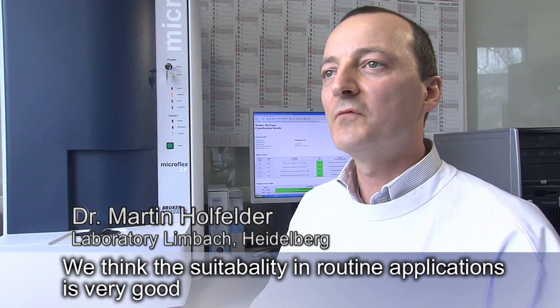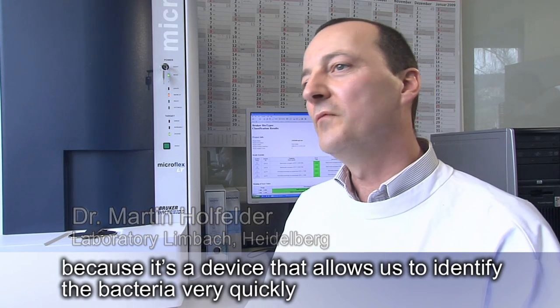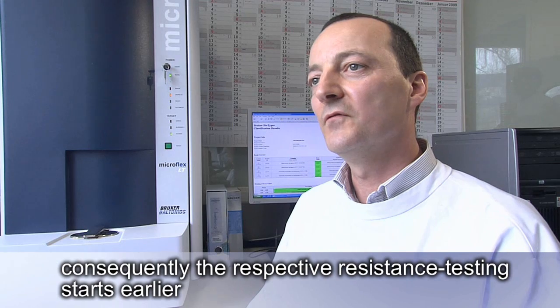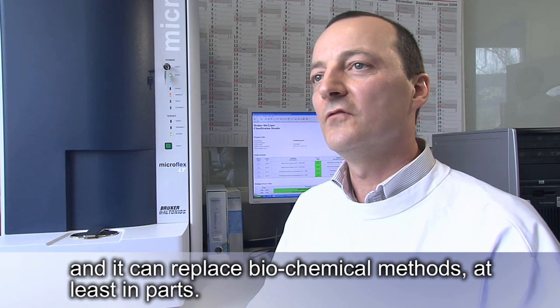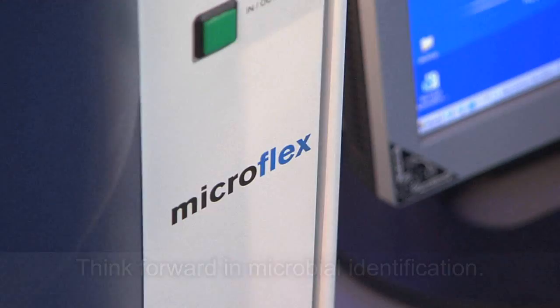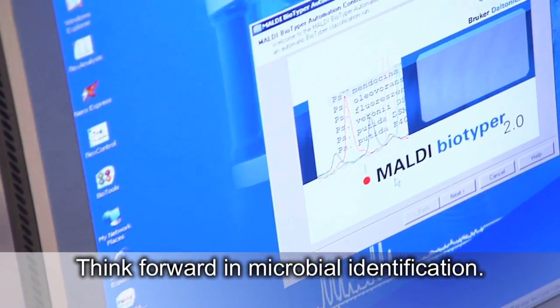We think the suitability in routine applications is very good because it's a device that allows us to identify the bacteria very quickly. Consequently, the respective resistance testing starts earlier and it can replace biochemical methods, at least in parts. Think forward in microbial identification.